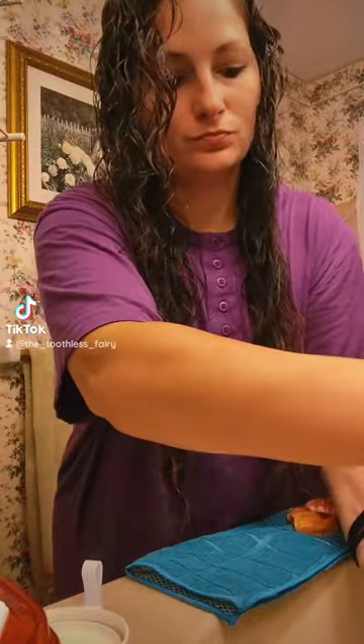Hey y'all, let's do my nightly routine, Tumpa style. I've been staying at my grandma's for the weekend, so I've got my travel denture case. Love this thing, and it's spill-proof to top it off. So I bring all my denture stuff, and I always joke that my dentures have their own carry-on luggage, and it's true.